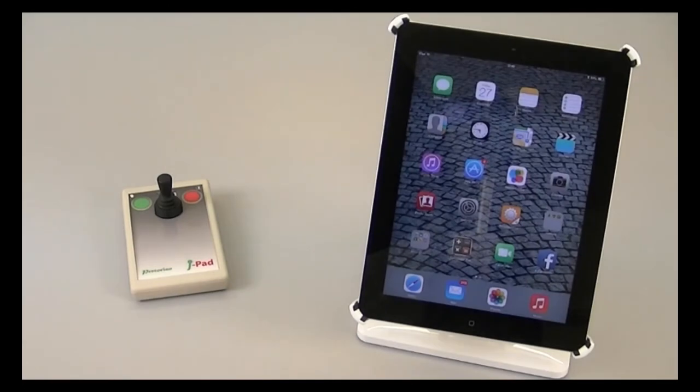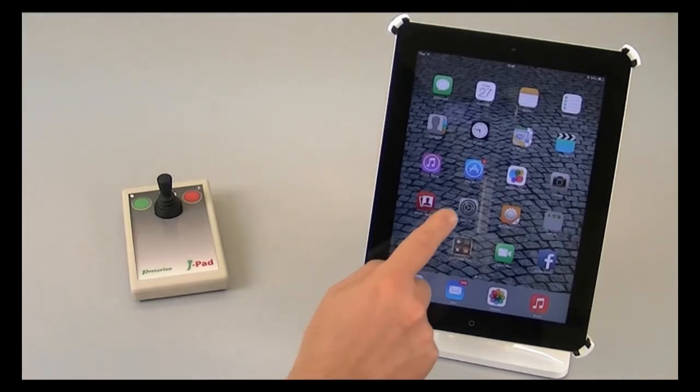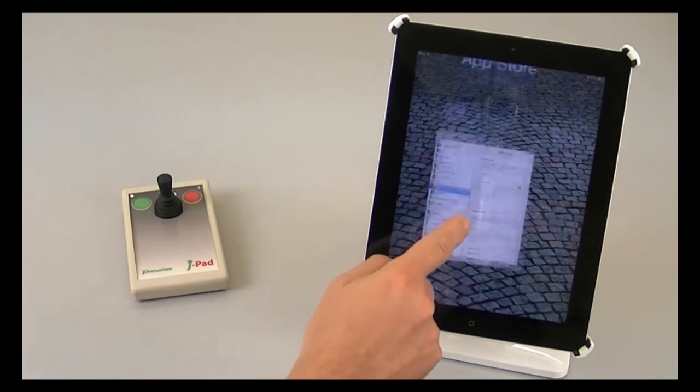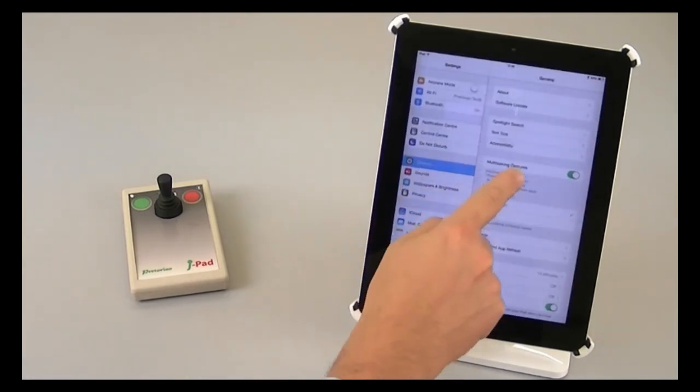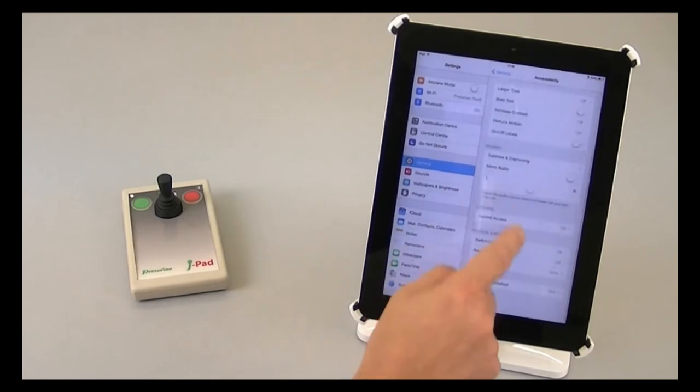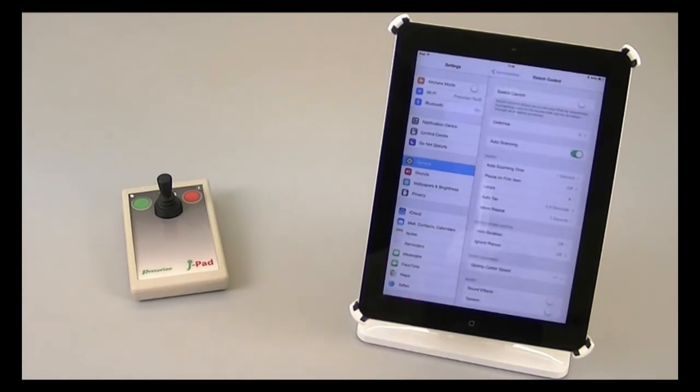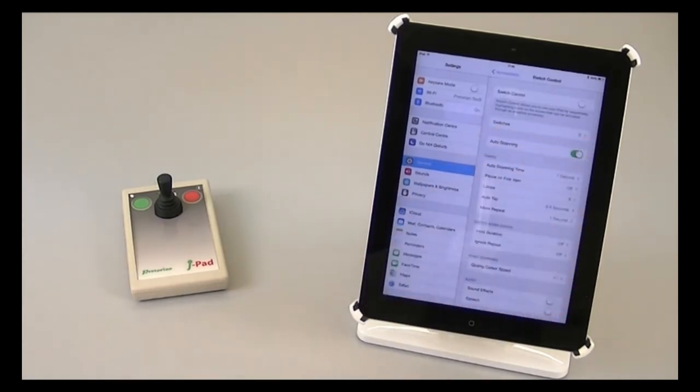It's particularly important that I set up J pad to mode 5 as I've just shown you before I start making any settings on the iPad. Once I have, then I can go to settings, general, accessibility, switch control. Now you'll see I've got no switch functions set up at the moment. In fact, I'm going to need to set 3 so that J pad will do what I need it to.